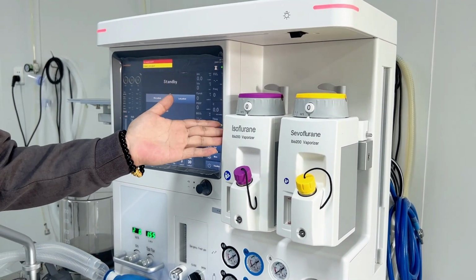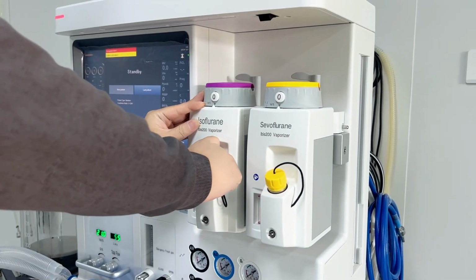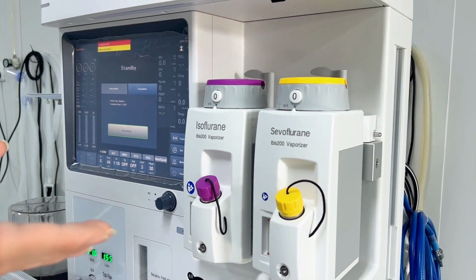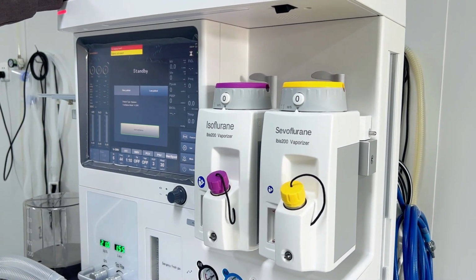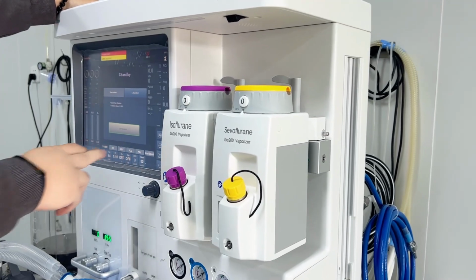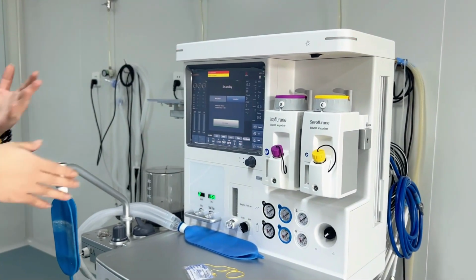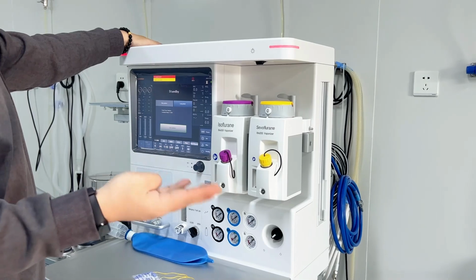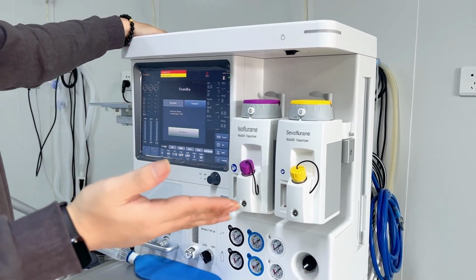And for our ventilator, we have different choices. For example, for the medicine filling, we have the pour filling one, the key filling one, the easy filling one, and even the quick fill, which you can choose. And for the ventilator itself, we have the advantage of automatic temperature, flow, and pressure compensation. Because when the gas gets inside the machine, it's a long route to get to the patient end, so there must be some loss of the parameters. With automatic compensation of temperature, flow, and pressure, it will always ensure the patient gets exactly what the doctors want them to get.